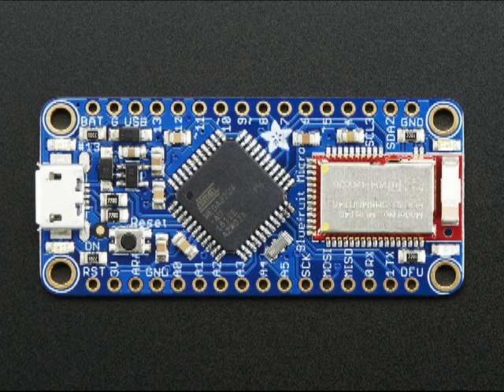This is an Adafruit Bluefruit Micro processor. It contains an Atmel 32U4 similar to Arduino Leonardo. The micro switches I showed earlier are wired into 3 of the input pins. The processor scans the buttons and then sends a code from the Bluetooth device to the iOS device as if it were a key press. The switch access features of iOS interpret those key presses to scan through various menu items or icons and then select the one that you want.